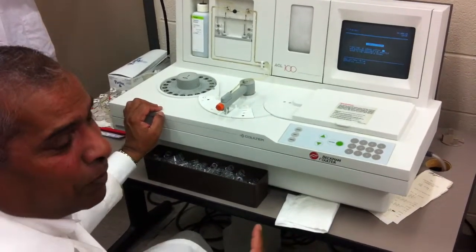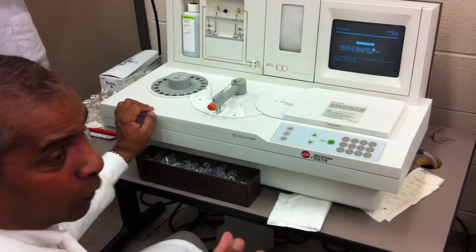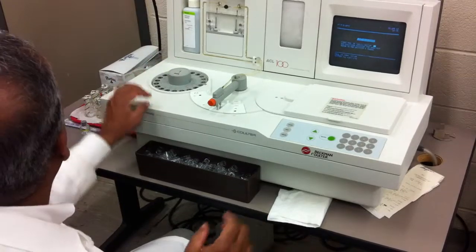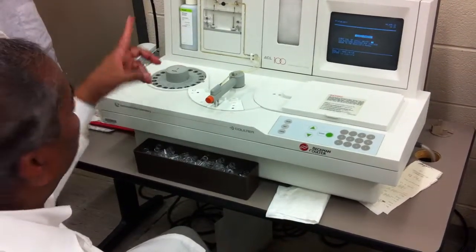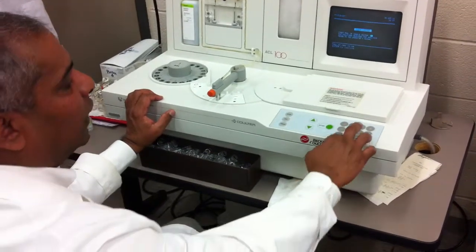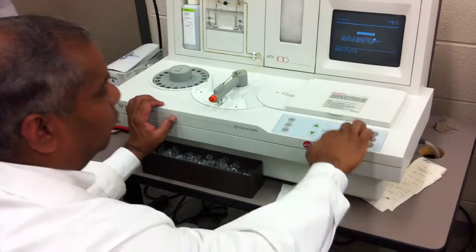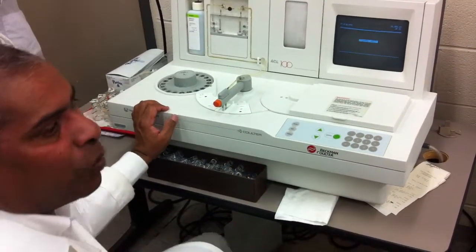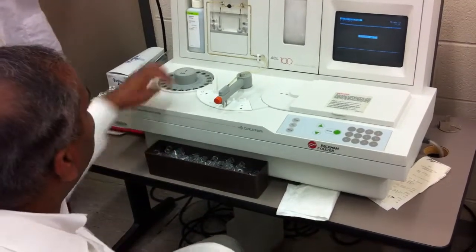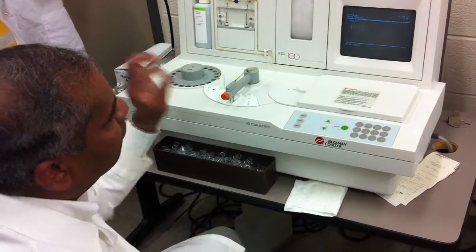So we used up how many before? 4, right? So that was 4 things that were done because we had 4 there. So it used up 4. So what would be the next space available? 5. So you press 5, enter. Doesn't take it. 4, enter. Okay, so you got to go back 1. So where is it stopped? So you see what I did. So if you run this, well, it actually used up 3 on each side.